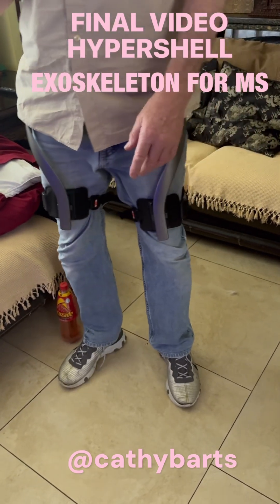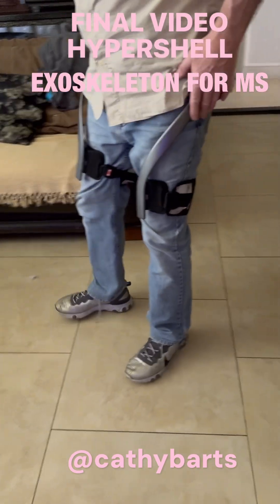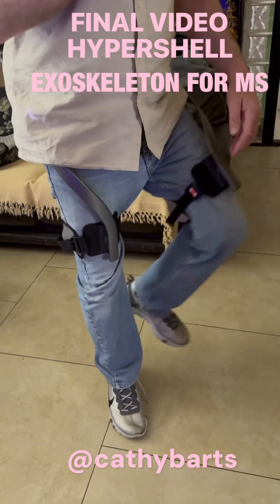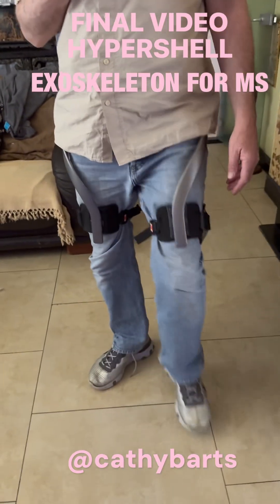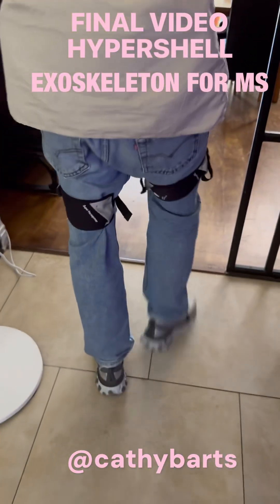It's not so good with sideward motion because you are restricted — not restricted by the sensors at the sides of the hips, but it pulls your leg up for you. It gives you a power assist — that's the only way of describing it. And your legs had very little strength before.